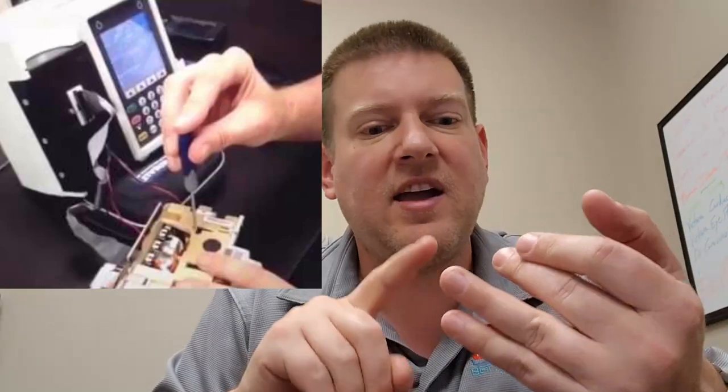I found a video where this guy is using a calibrator - he also has some metal discs for 0 PSI and 10 PSI. The calibrator looks like a Hospira pump that has a different set of software installed, and the front faceplate has connections for cables - a data cable and a power cable - that come out and connect to your pump module so you can calibrate it.